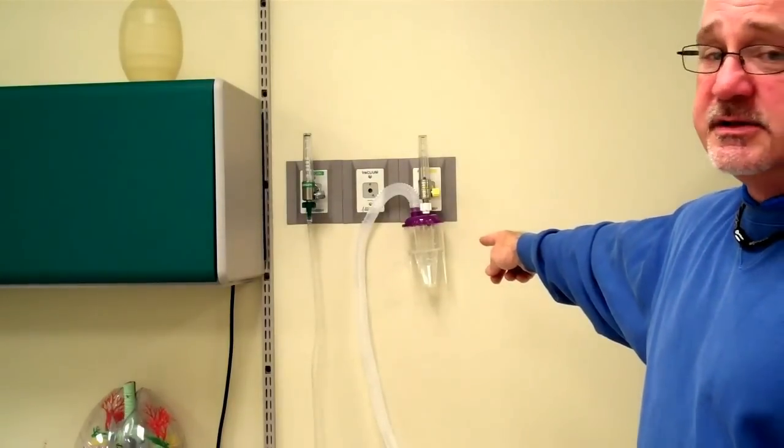When you're looking at your patient and you're doing a large volume heart nebulizer, know that you have two different ways of delivering the medication at 10 liters per minute or 15 liters per minute. Look at your dosing. This is not something someone's going to memorize. This is something that can be on your fingertips. You got to remember what I've said several times and it's not always brains on top, it's brains on tap. You need to go to your hospital policies. I'm sure there's one on giving continuous medication aerosols and also on the inserts of the devices that you're going to use when delivering this type of therapy. This again is for your large heart nebulizer. Make sure you read your inserts and remember that if you're going to give your patient more than one treatment, you're going to give them several treatments, you're going to probably use the setup very similar to this. This is a large heart nebulizer.